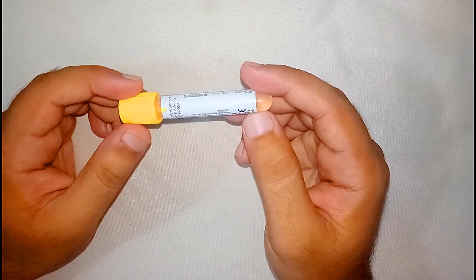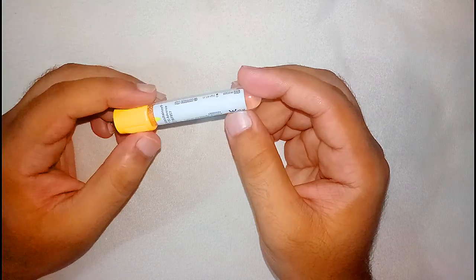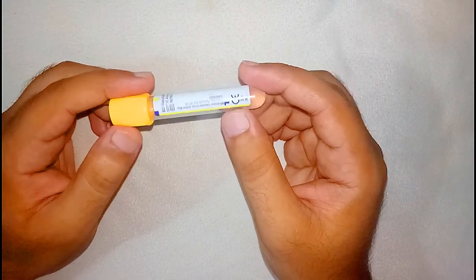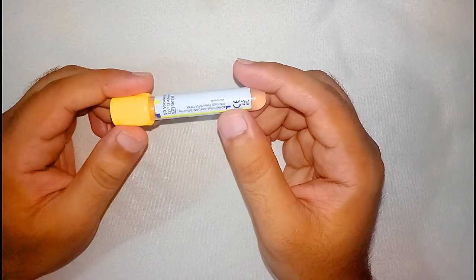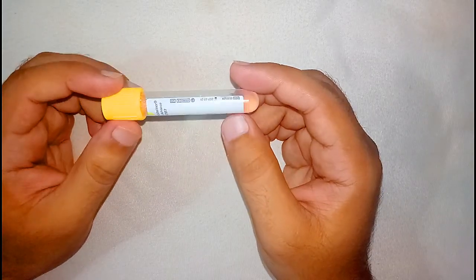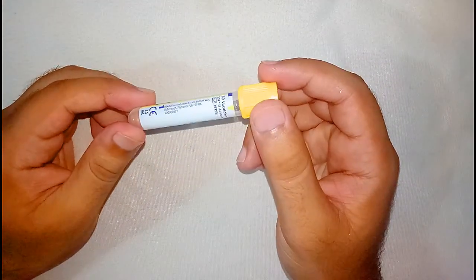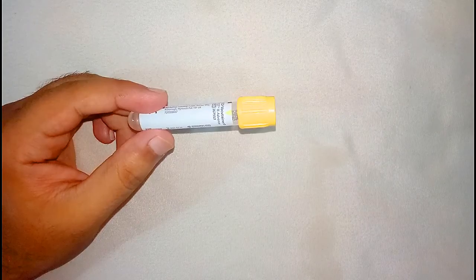are basically renal function tests which are comprised of creatinine level, urea level, and for some, uric acid level. So these are the main tests which are done on the basis of serum in daily medical practice.